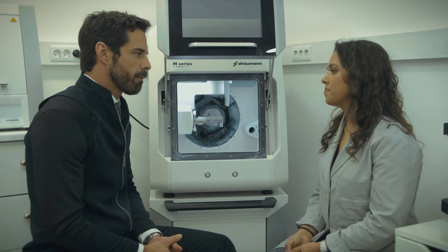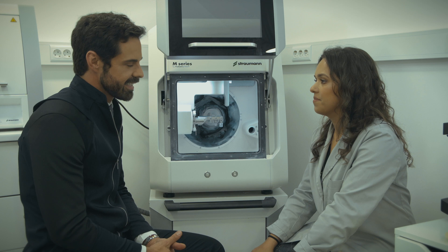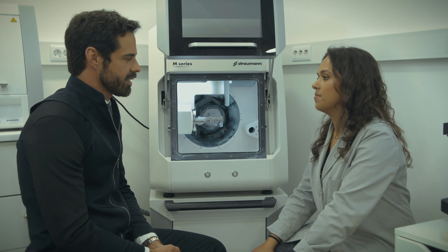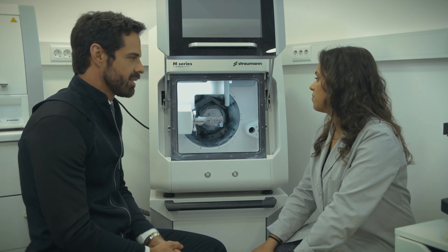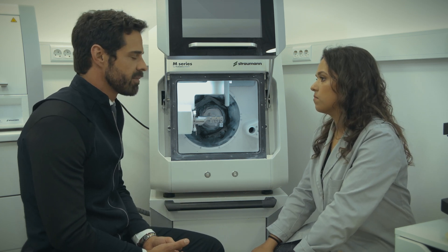And you can mill surgical guides also? Yes, it's possible. Jessica, what can you say about the quality of the materials that come from this milling machine? The products are made with accuracy, high quality and precision.